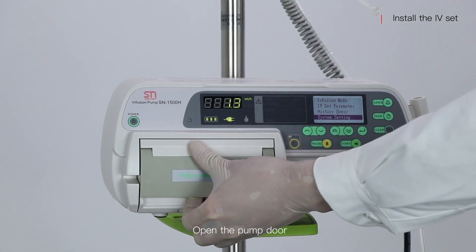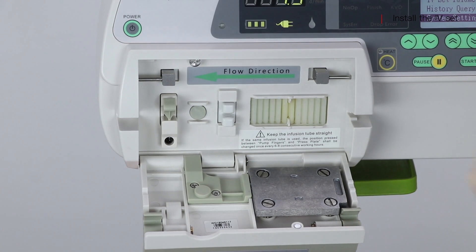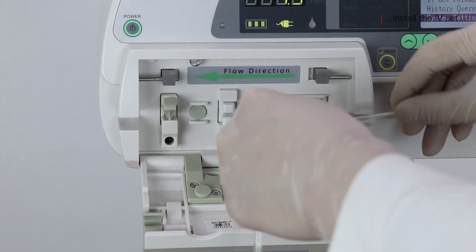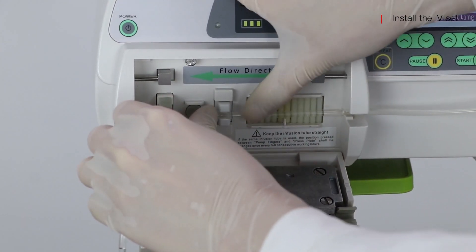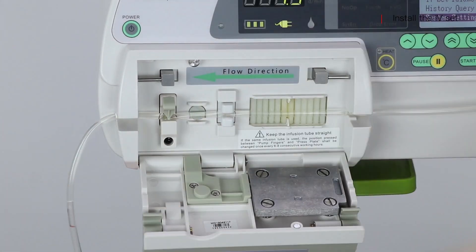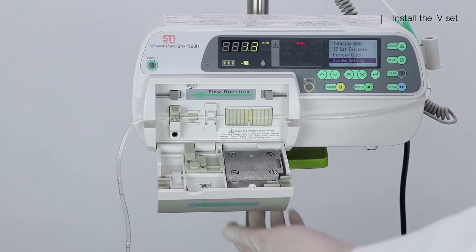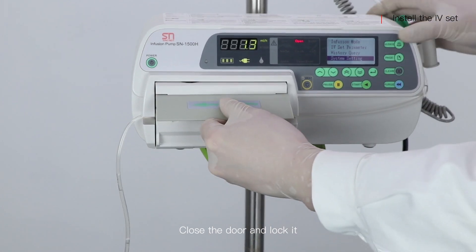Open the pump door. Follow the arrow direction to install the IV set. Make sure the IV set is in each slot of the channel. Close the door and lock it.